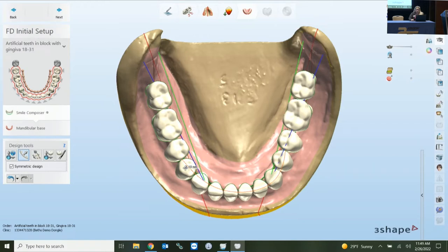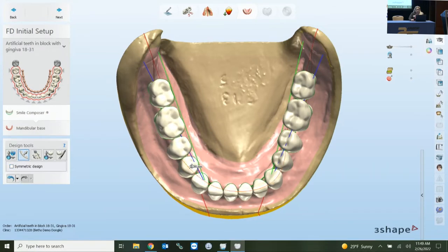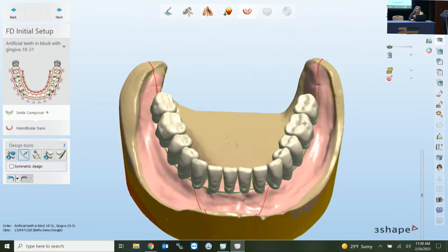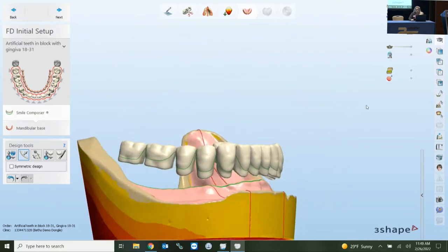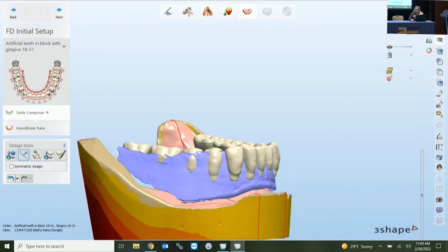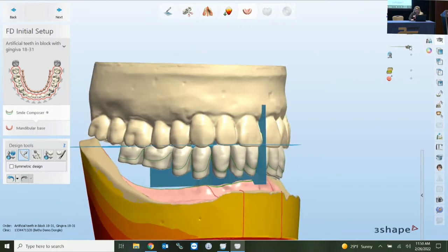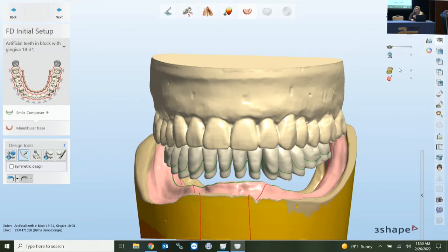The symmetrical mode works very well, but for different sides of the mouth you can uncheck it and still perform sectional movements. When you start with the global, move some sections using arc transformation, you can start to incorporate visuals on the right — bringing in your bite or wax rim, your opposing, and your planes. There's also an occlusal map that brings in a color scale showing how it's interfering or intersecting with the opposing.